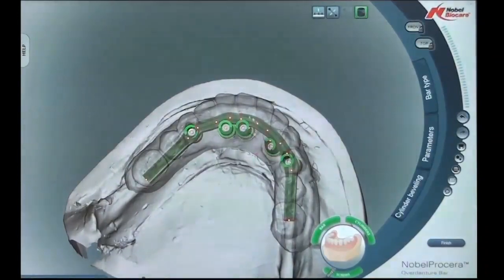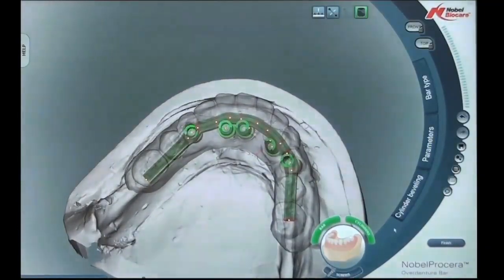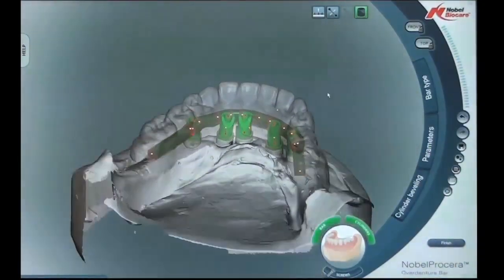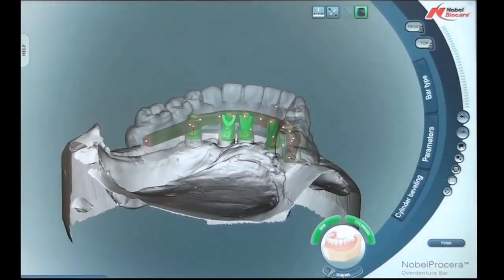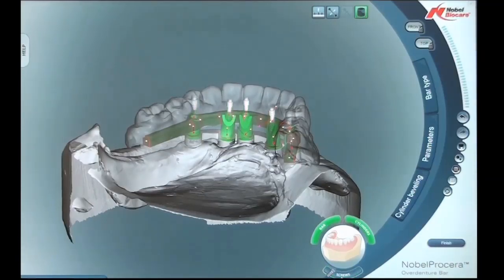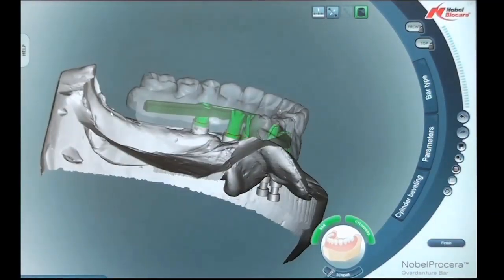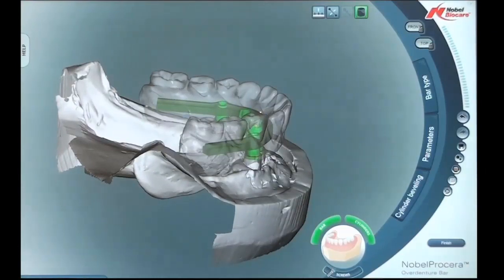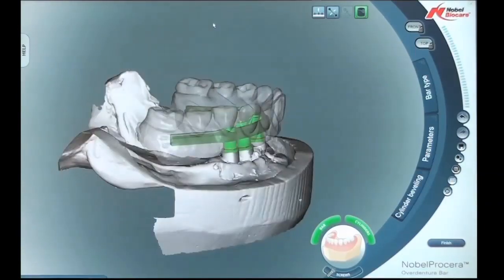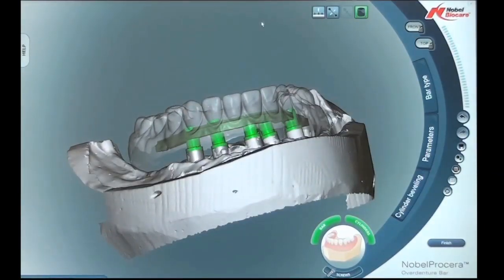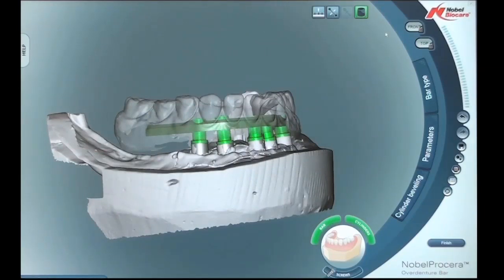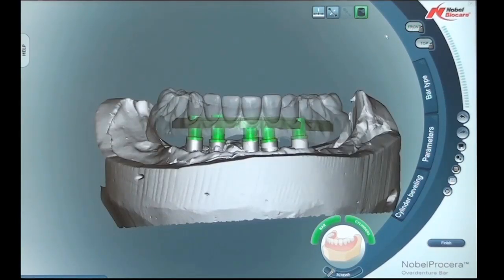The software also has a feature to click on the screw segment, which allows the screws to come in and out of the bar to help you see any trajectory issues you might be dealing with. On this particular case there is plenty of room on the lingual segments. We're overlooking the whole design of the bar — checking that the cantilever is correct, ensuring enough space on top of the bar for denture teeth and acrylic, and making sure there's enough hygiene space and that the bar is correctly positioned within the parameters we have to work with.